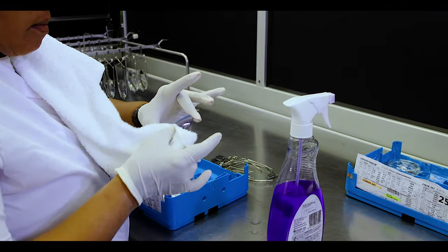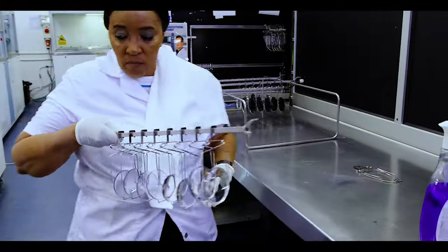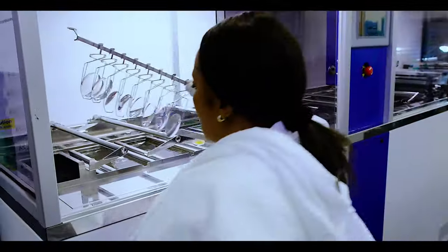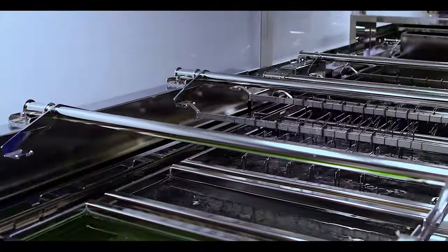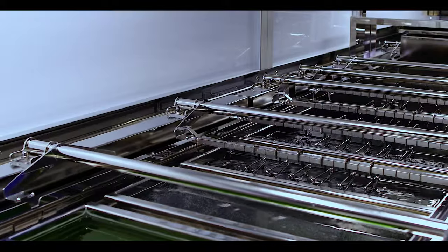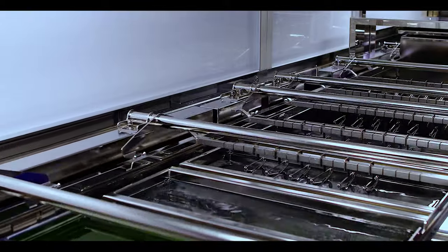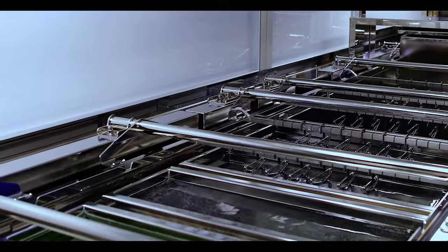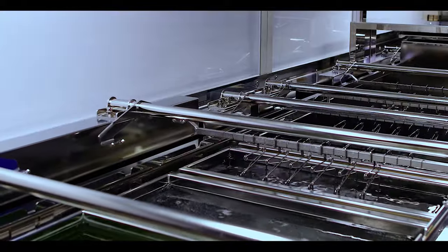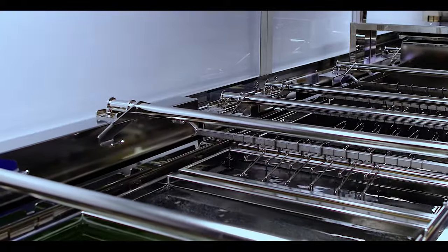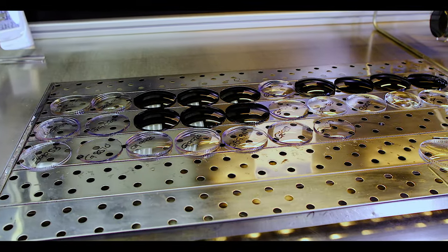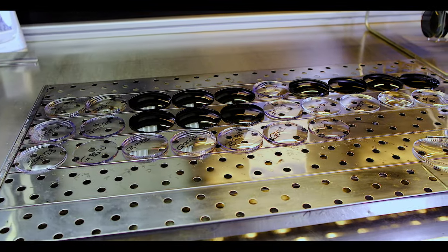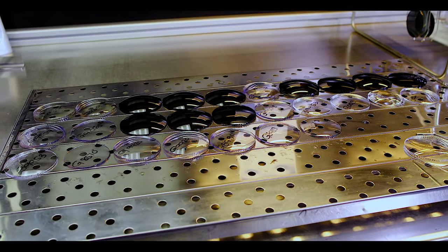Flawless lenses are then put into a special machine that ultrasonically cleans the lens and then etches them. The lens etching process assures adhesion of the treatments to follow. A scratch-resistant coating is applied immediately after the etching process and then transferred into an infrared oven to cure.